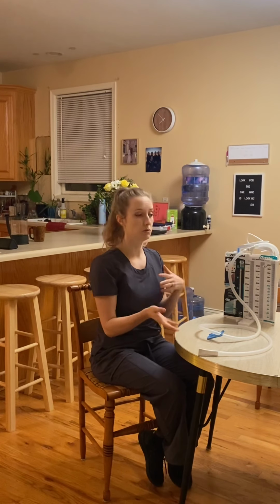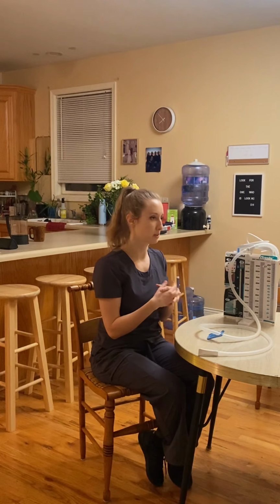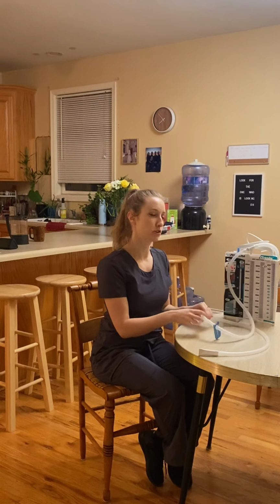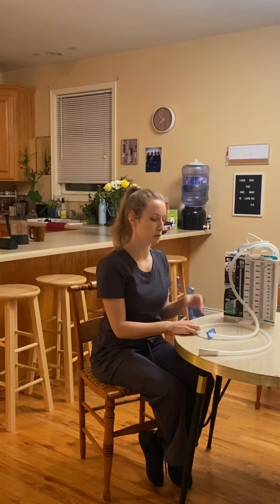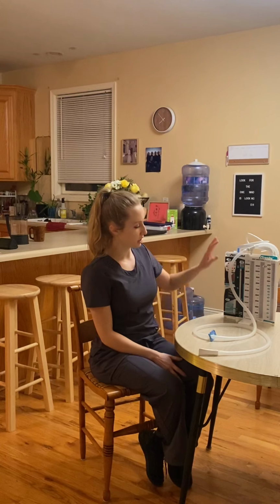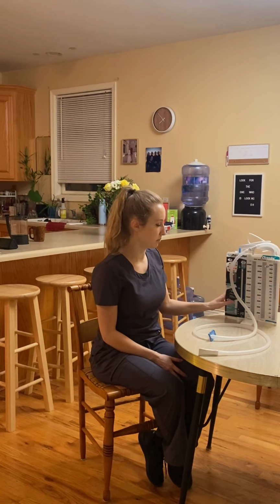Please do use caution when standing or getting up. Not only will you be in some pain and on some pain medication for that, but this tube is very easy to trip over, and if you pull it out, it will be uncomfortable for you. We will have to put it back in. So I just wanted to talk to you a little bit about what this means.